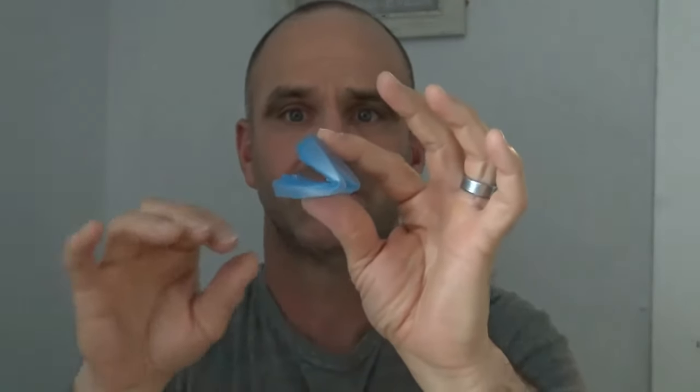If you store it like that, it keeps the spring. I especially like Z-Quiet because I sleep with my mouth open, and Z-Quiet helped me out a lot with that because it holds my lower jaw out even with my mouth open. The theory is, if it holds your lower jaw out, it keeps your airway open and keeps you from snoring.